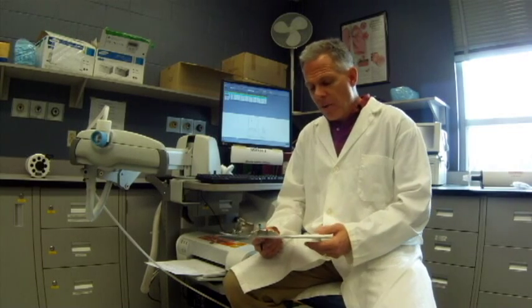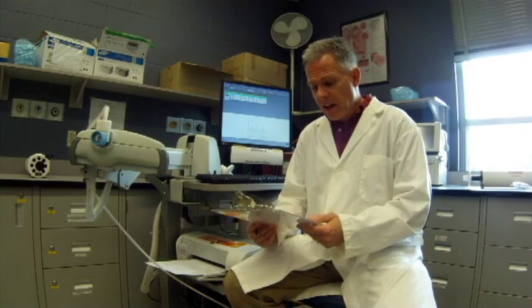We need to know why we're doing the PFT — that's important to get from our client or patient. It might be because they have some symptoms we should be aware of. We want to get a good idea of their medical history, and there are specific questions we need to ask before we do a PFT test. Those are guided by the American Thoracic Society guidelines.